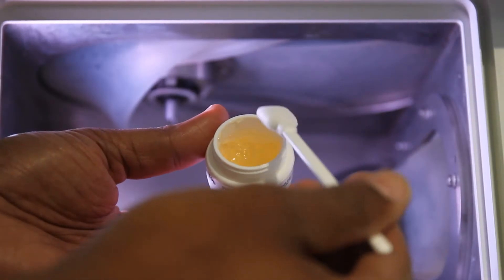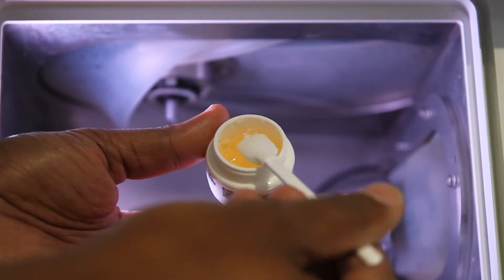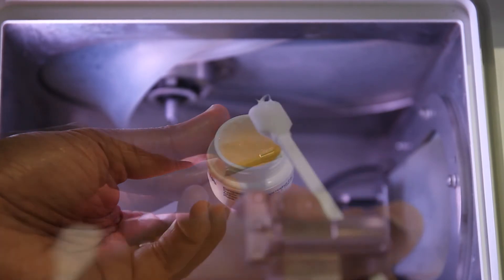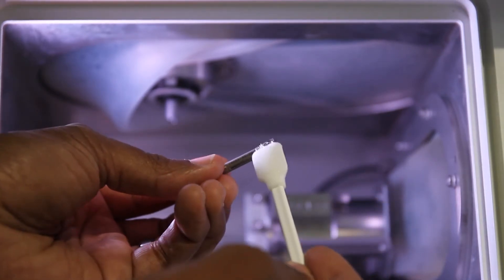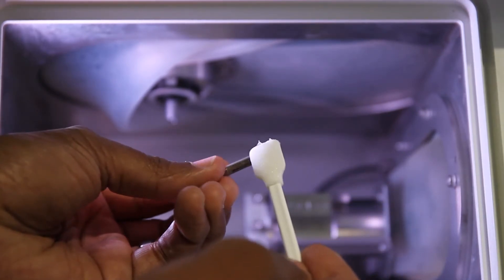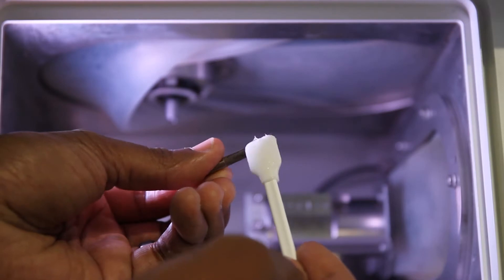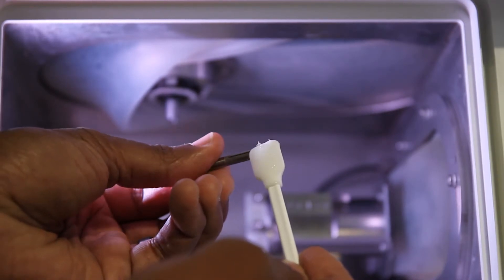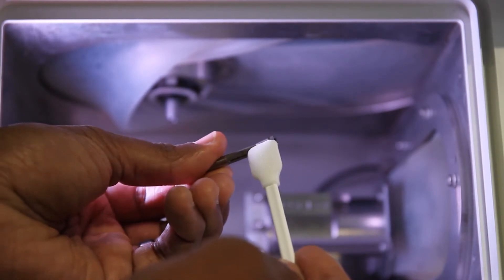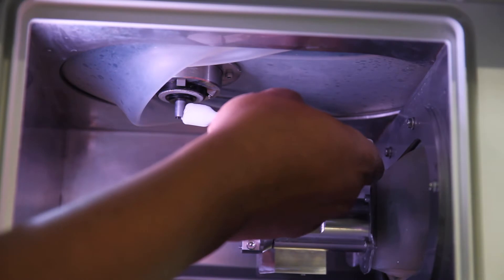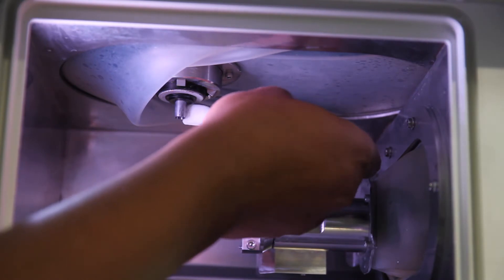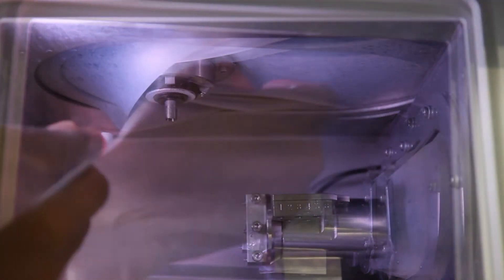Apply a small amount of grease to the taper of the collet. Once the grease is applied, distribute the grease on the entire taper of the collet. Then, apply a small amount of grease to the spindle head.